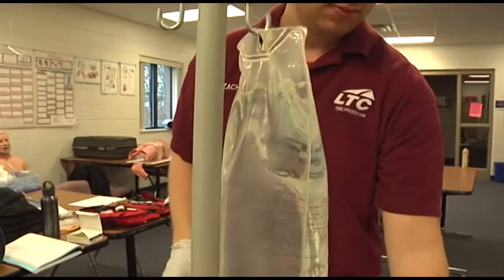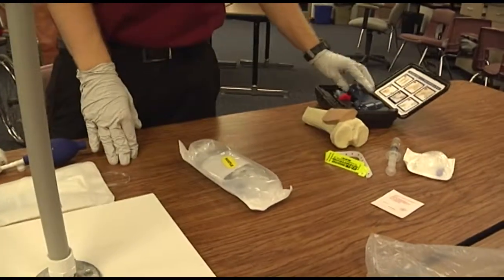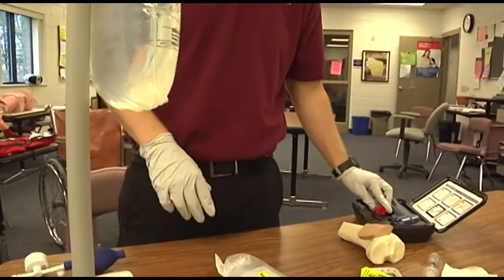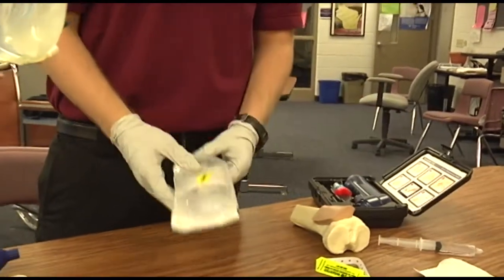Selects the appropriate equipment, which would be your EZIO needle — the adult needle for this skill — a syringe, a pre-filled syringe with saline, and your extension set, which is still in the bag; we'll get to that in a moment.